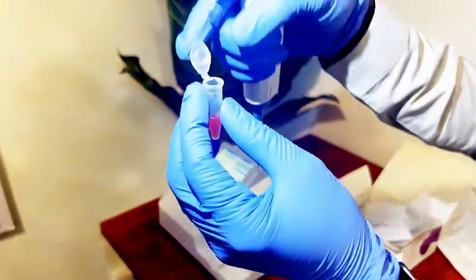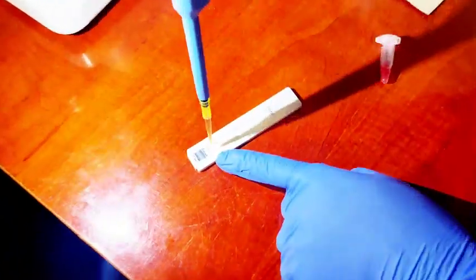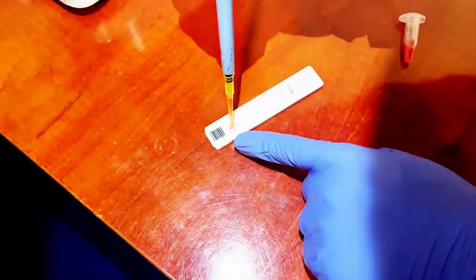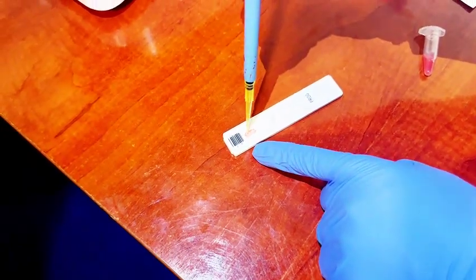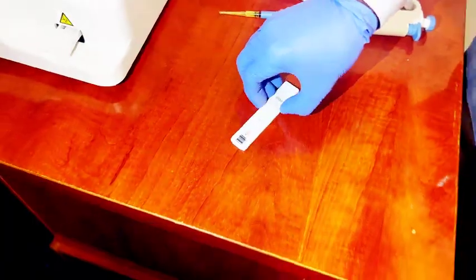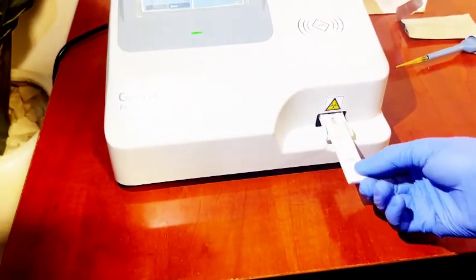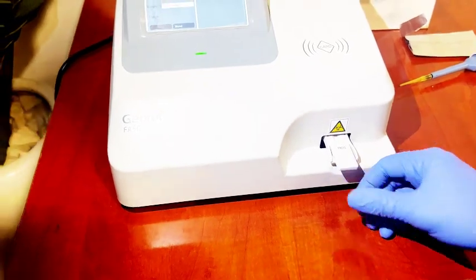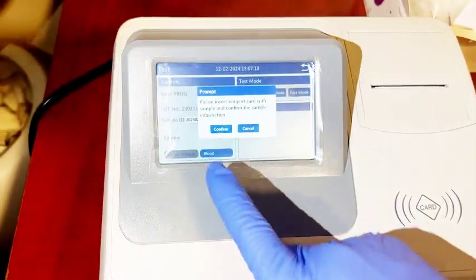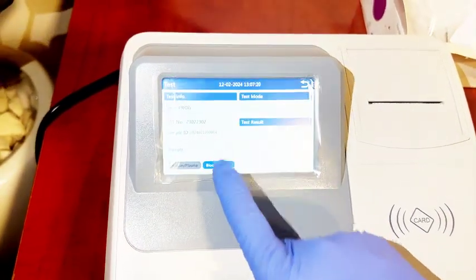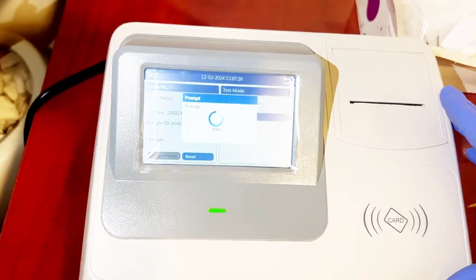Make it right, then drop it here in the slots. Press Standard Mode and the machine has started counting.